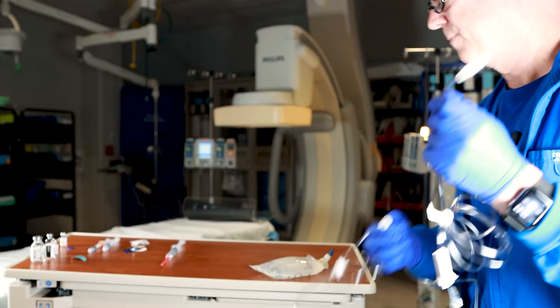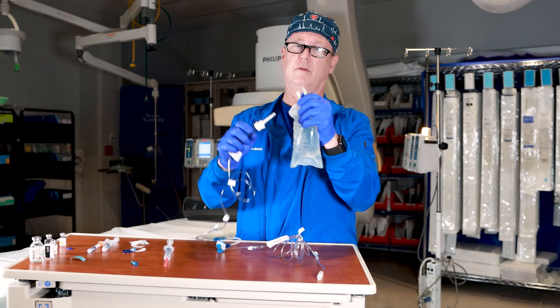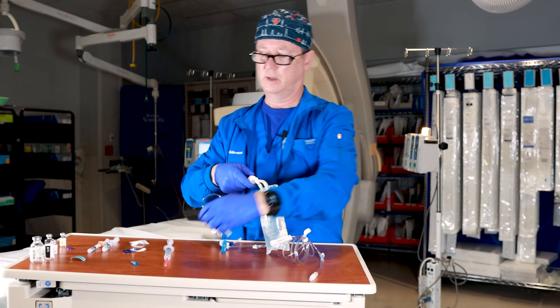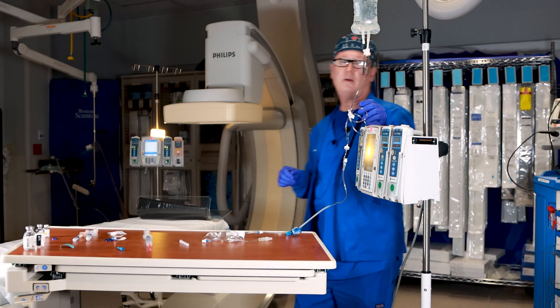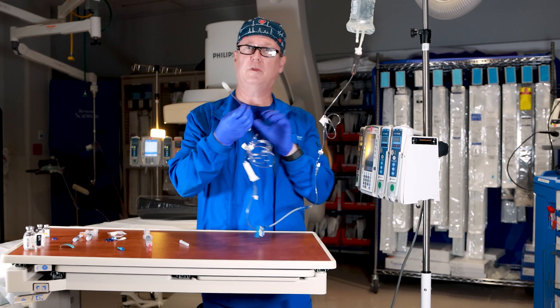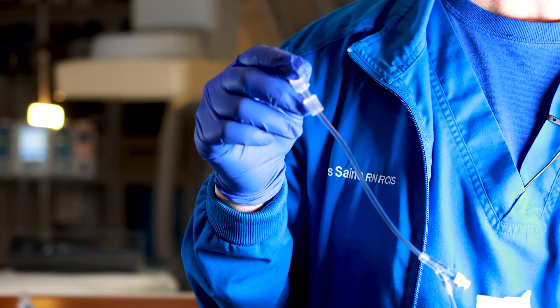You take your bag of IV fluid, pop the connector off the end — keep that sterile — plug it in, and twist slightly while inserting. Then hang it on the IV pole. Now you've got to get the air out of the line. Air looks just like the fluid. I can tell there's air because I can see variations in the tubing. The distal end of the tubing has nothing but air — which looks just like clear fluid.